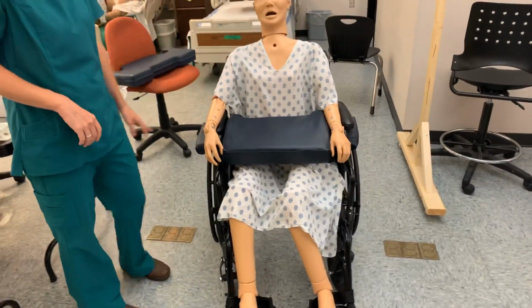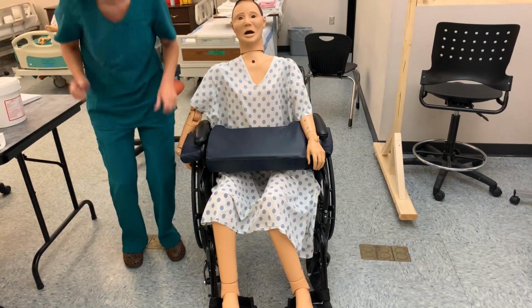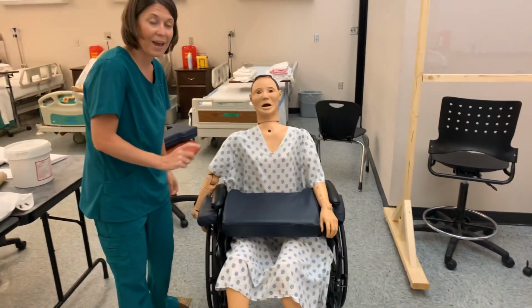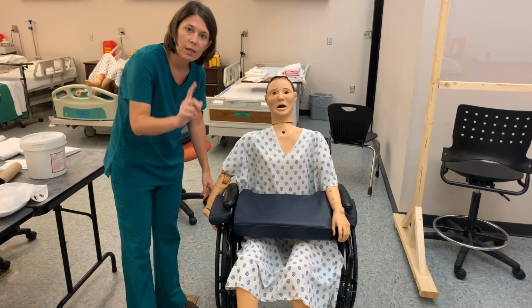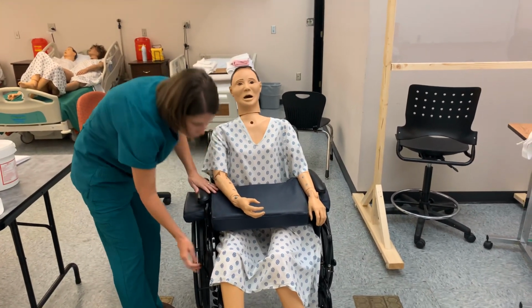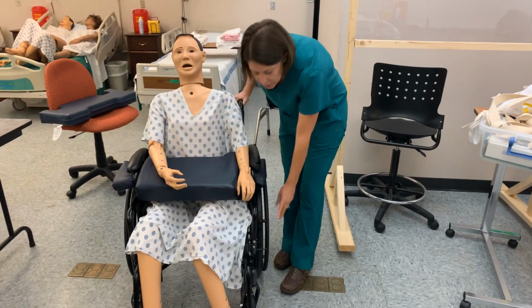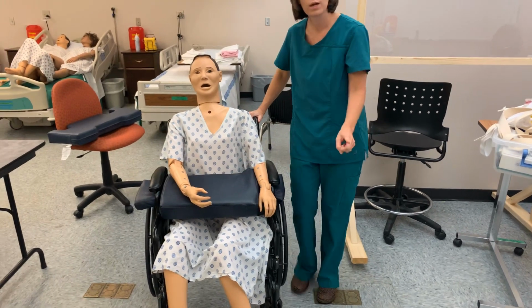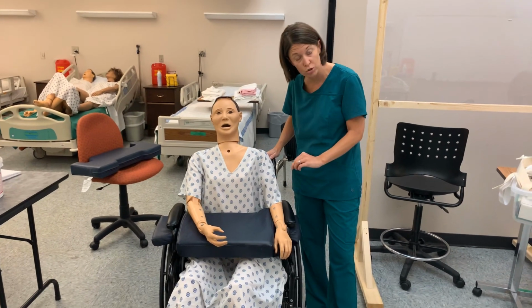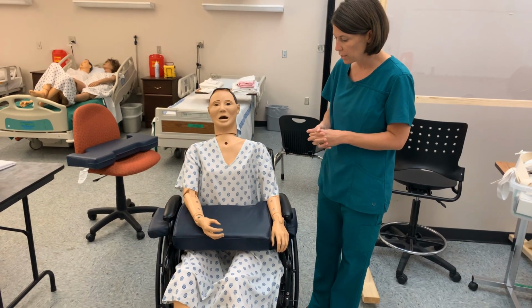So let's just say this client normally got around by putting their hands here on the wheels, and they would move throughout the facility using their hands, but they can't because you've locked the wheelchair. That is considered a restraint. Now, if they can reach down and unlock it themselves, and then move about, it's not a restraint. So be real careful about that, because in this situation, if they had this lap buddy on and I put the brakes on and they cannot undo either one, I have actually double restrained, and that is a big no-no. Okay, so just a couple of things to keep in mind with that.